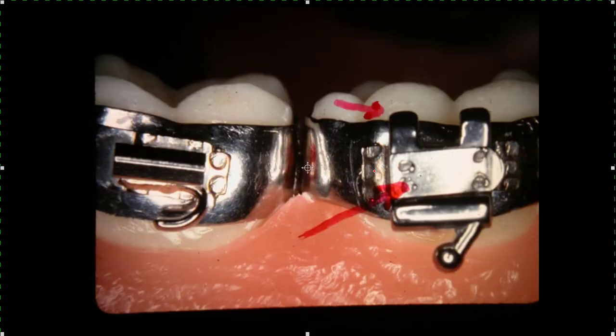This is the six-year molar and the second molar is always just a single slot. I still band the six-year molar - you put a bracket on this tooth and it doesn't have to do all that much. This is convertible and shows that the bracket is just three-quarters of a millimeter lower. In other words, you put your bracket down on the band - the band fits at a certain point and you lower the bracket on the band, and the supplier will do that for you if you want.